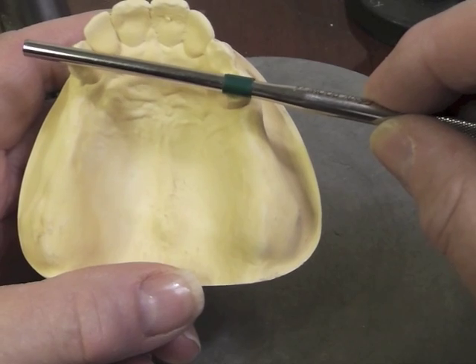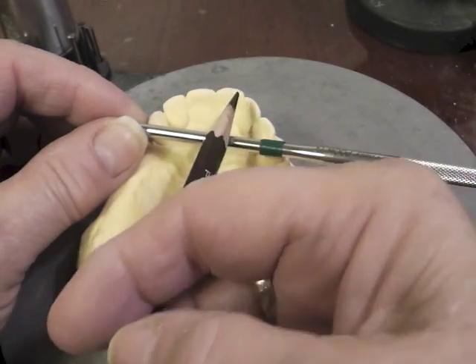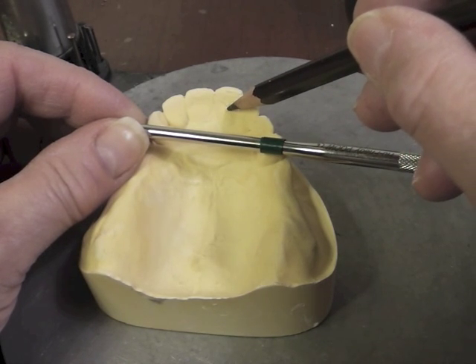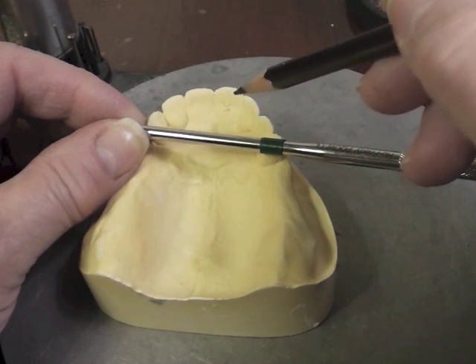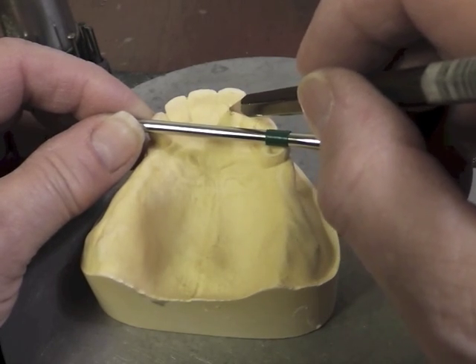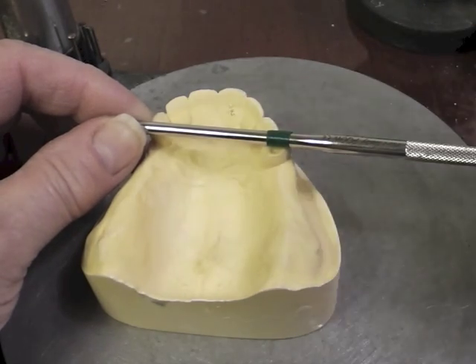Our fulcrum line crosses across here and we have to consider one other thing when we have an extension base removable partial denture. We have a fulcrum line that we're going to drop a perpendicular to, and wherever this points, that is the farthest point away from the fulcrum line on which we would place an indirect retainer. On the maxillary arch we can place an indirect retainer on our central incisors, not usually on our lateral incisors. We might be considering an indirect retainer right here to prevent lifting of this back end under sticky foods.